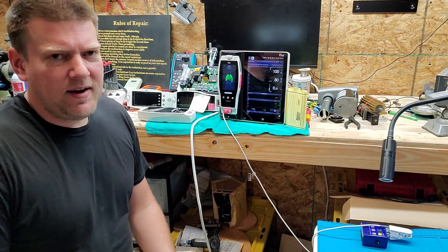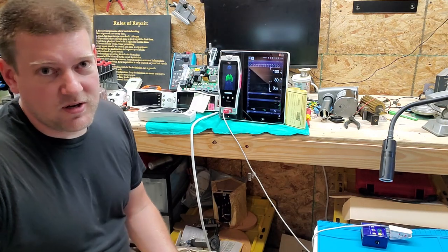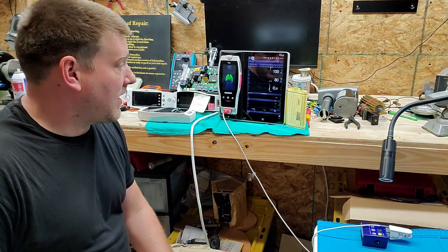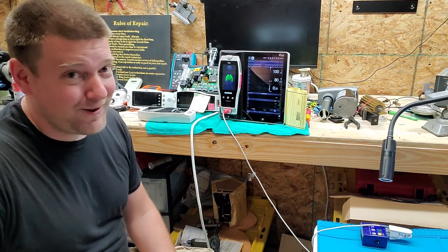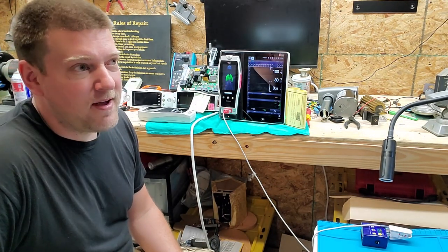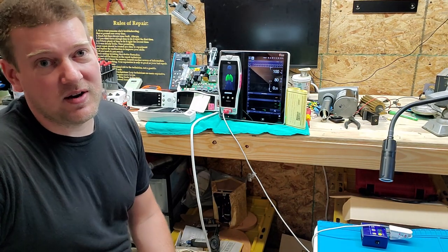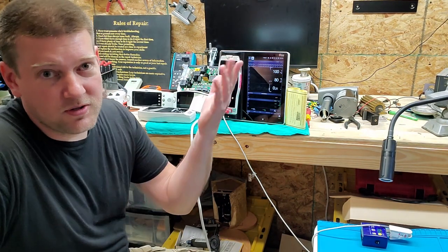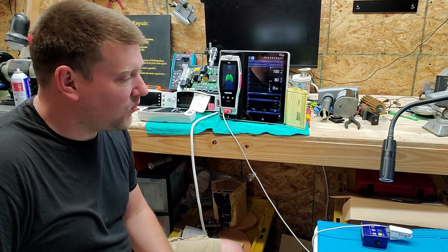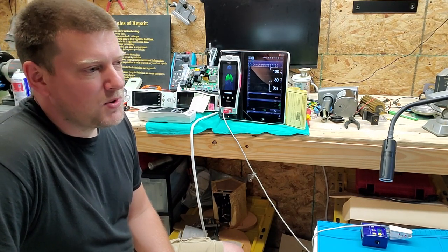The reason I have these at home is because I'm currently dealing with some touchscreen issues. I've never really dealt with the Masimo Root system before — I've seen them in use and they're actually kind of cool, very versatile. But the fact of the matter is I've seen five, six, maybe even seven units recently with touchscreen errors, or they just don't have a working touchscreen at all. I really started digging into it, wondering what the heck is going on, and today I noticed something.